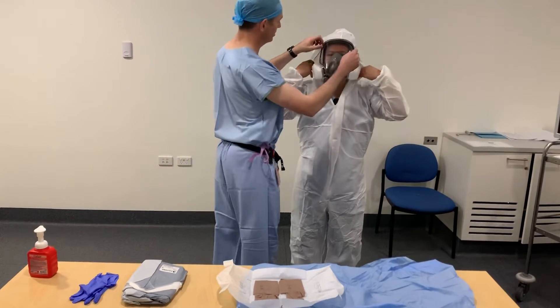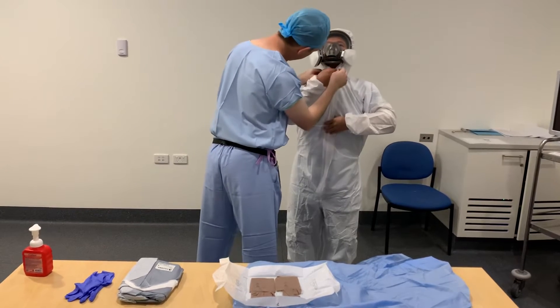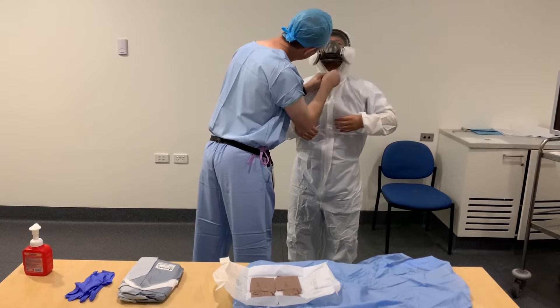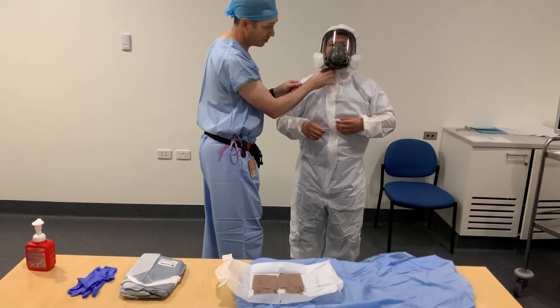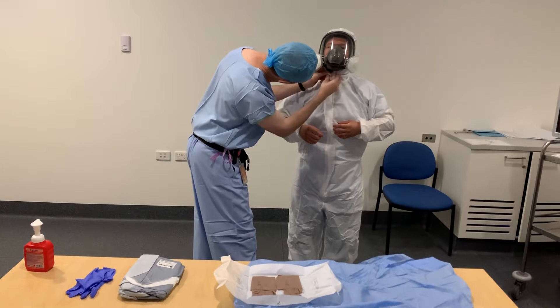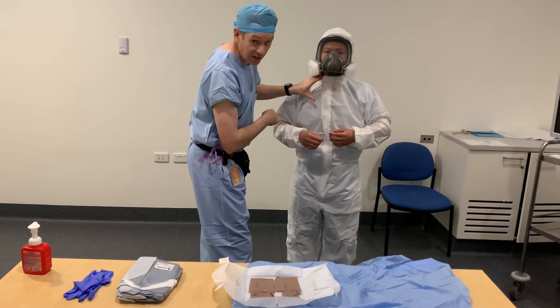Have your buddy check your seals all the way around the rim of the mask. Chin up and buddy assist with the zip. The 3M hood has a sticky section there — you may use a piece of tape, though it may add complication. Fit it up to the bottom of the mask to create a seal, because in a normal gown your neck is exposed.